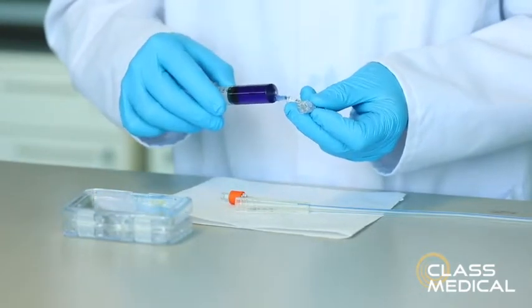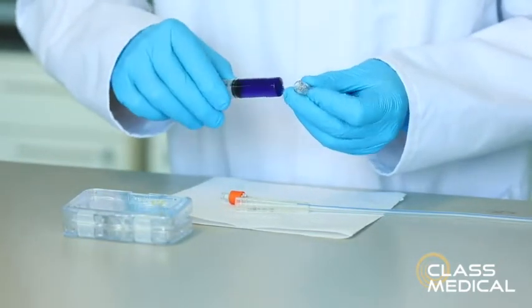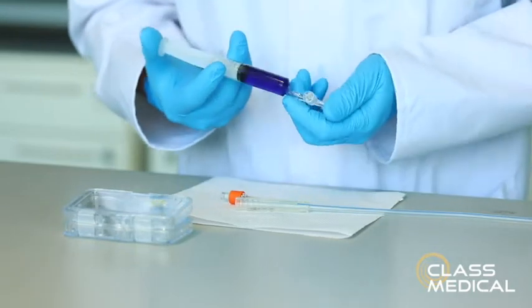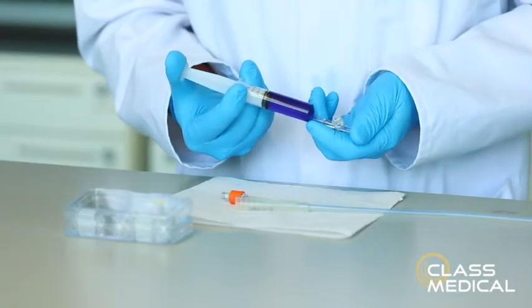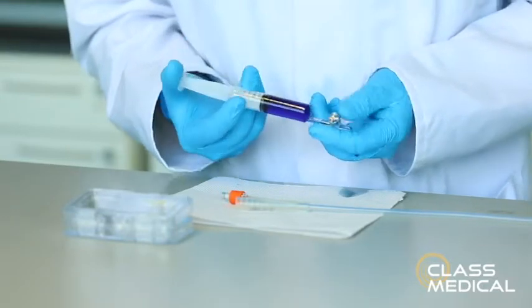The inflation syringe is connected to the device. A little pressure check to make sure that the valve is working. You see the fluid escaping.